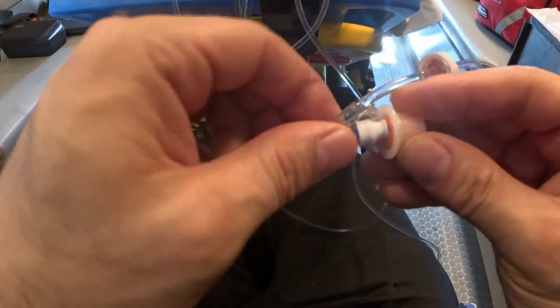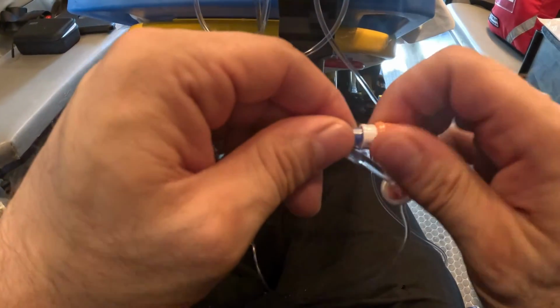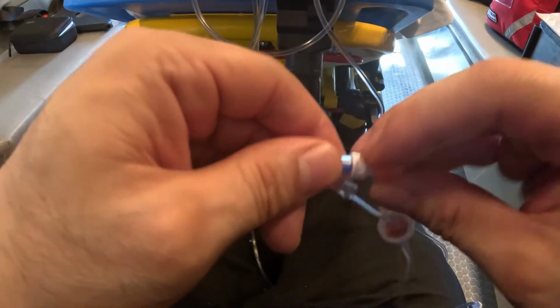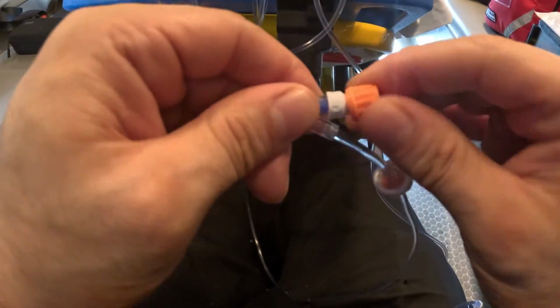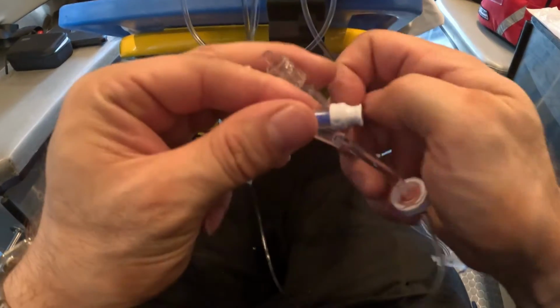Right? But this swab cap right here can be employed, right, in order to cleanse. Remove this from the plastic. So during transport, I usually transport with these closed, but what you can do is use it in order to cleanse your ports, right? So you cleanse your ports, and then you're going to Y-site connect.